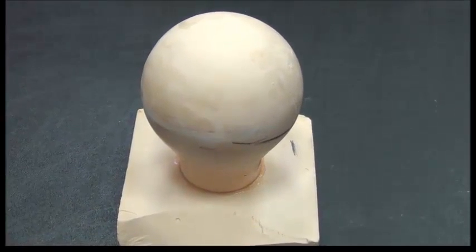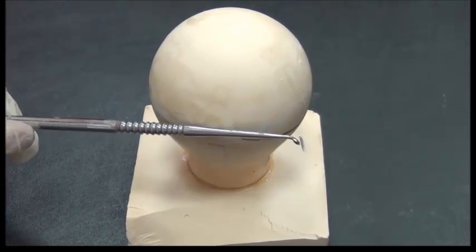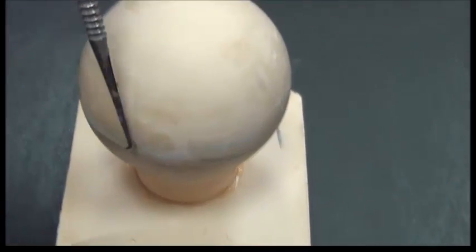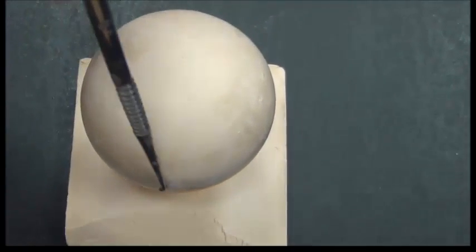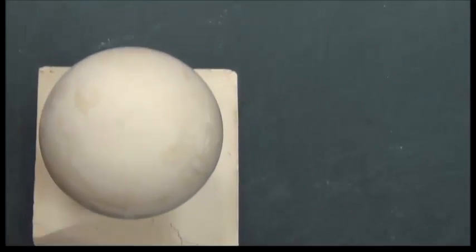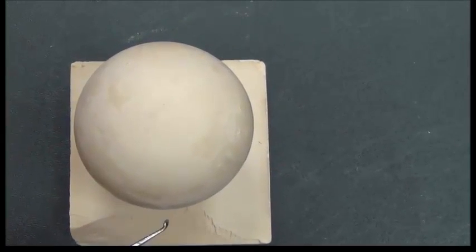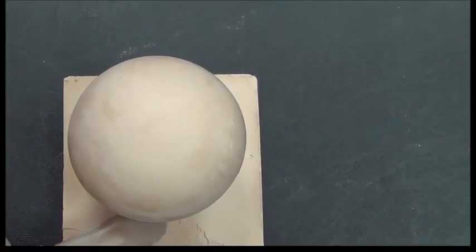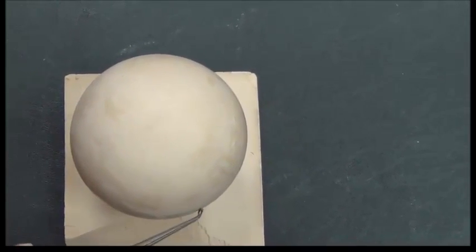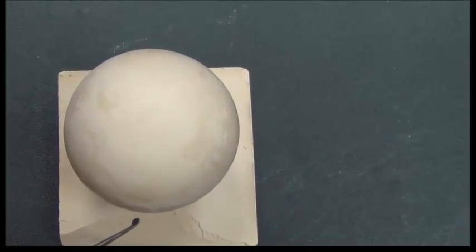I would find that we have what we call the maximum bulge. This is similar to natural tooth morphology, where at some location on the tooth we will have a maximum bulge. If we look at it vertically, we will find that there are areas hidden from this vertical path. This is what we call undercuts, hidden inside. And I need to make sure where the maximum bulge is, because by vision alone, I would not be able to decide where it is.